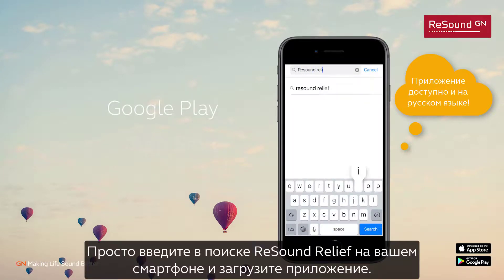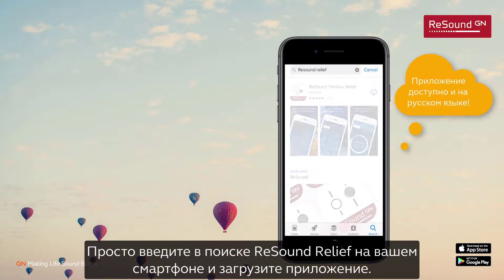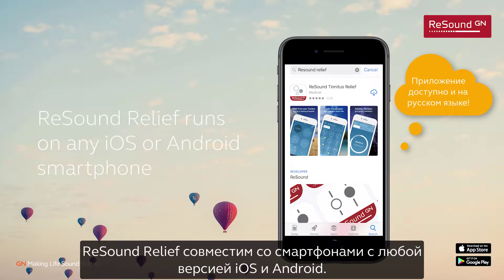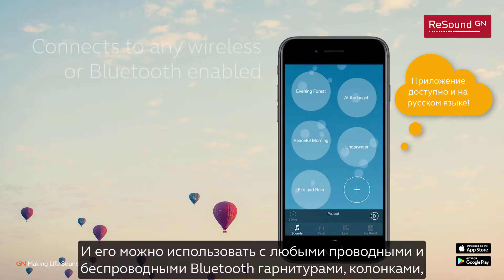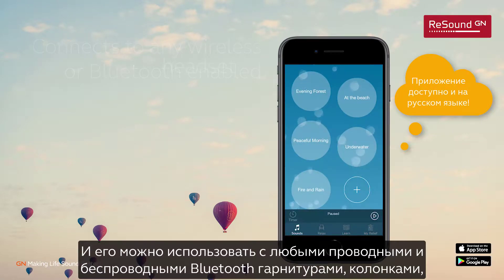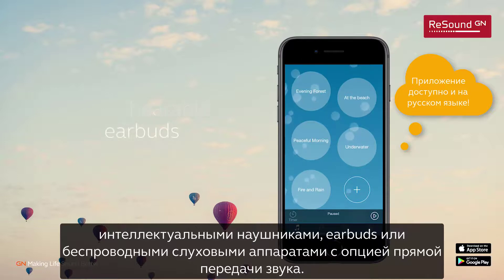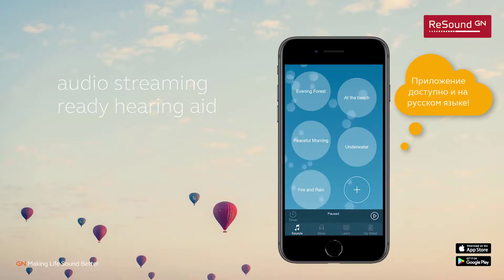Just search for ReSound Relief in your smartphone and download. ReSound Relief runs on any iOS or Android smartphone and connects to any wired or Bluetooth-enabled headset, speaker, hearable, earbud, or audio streaming-ready hearing aid.